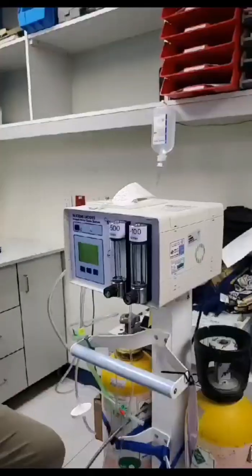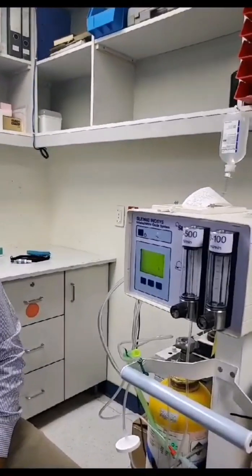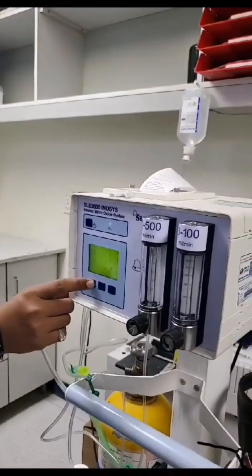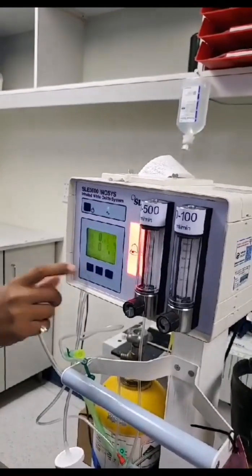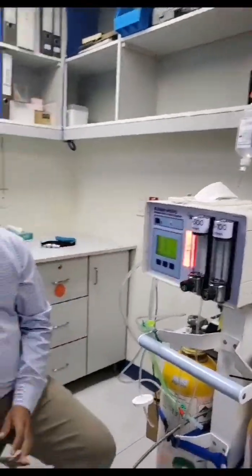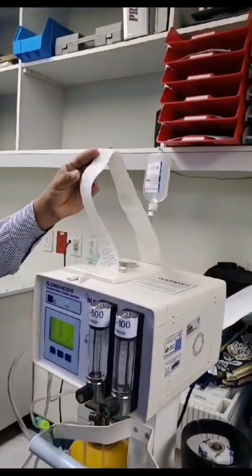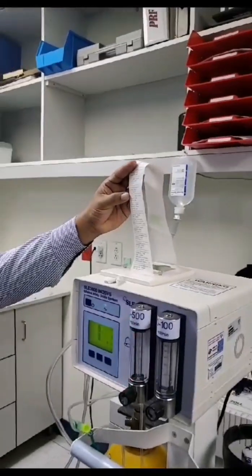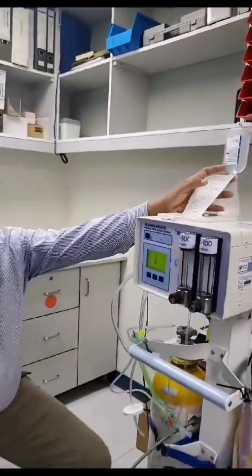So now we switch it off. Once we restart — continue, yes. So there is no more alarm now. The calibration alarm is done. So we have the readings here. It was calibrated at 8 ppm. And the other one was also calibrated — the NO at 27.7 ppm. So this is the record we have for the calibration.